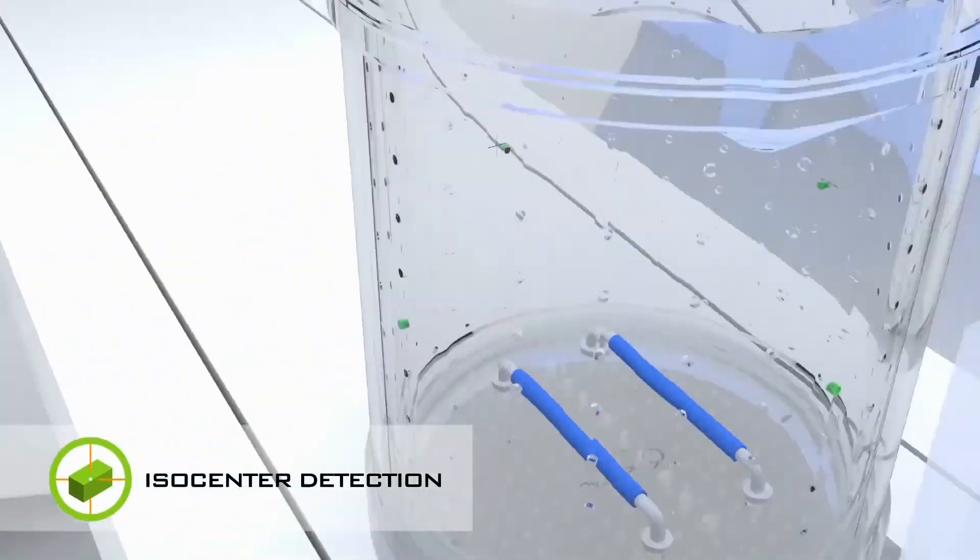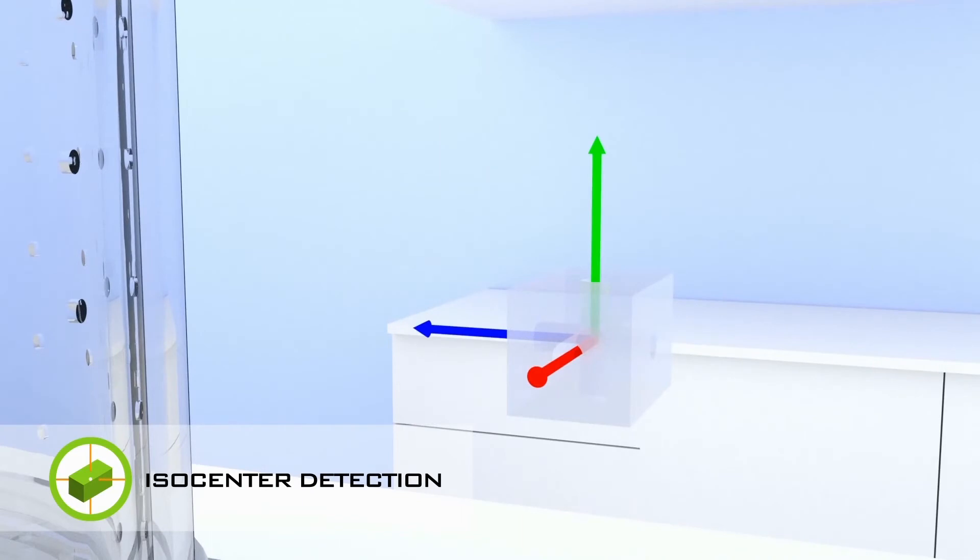MRI-D 3D features an XYZ orientation and scale cuboid containing fiducial channels to easily detect and visualize the phantom's isocenter.